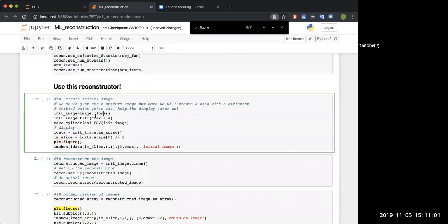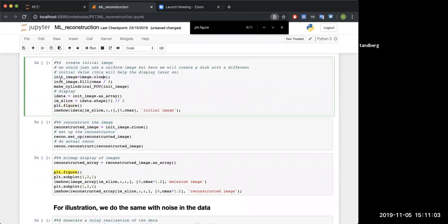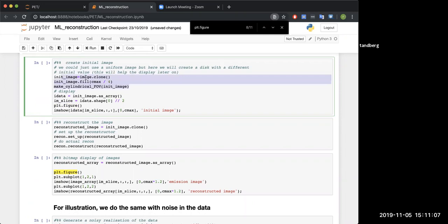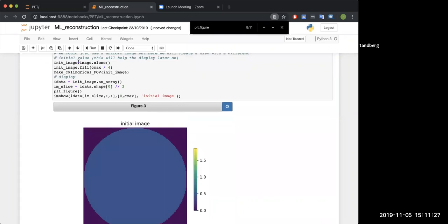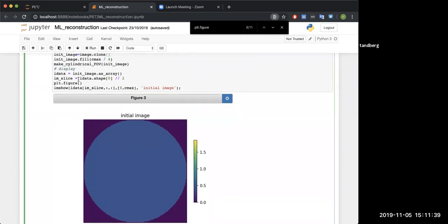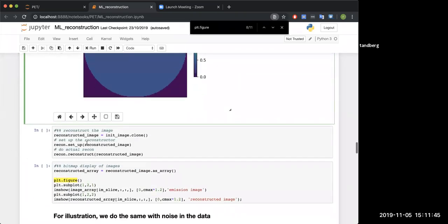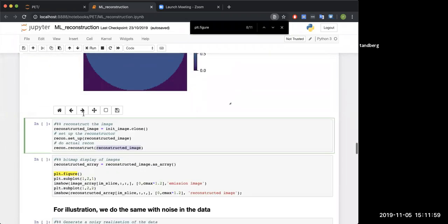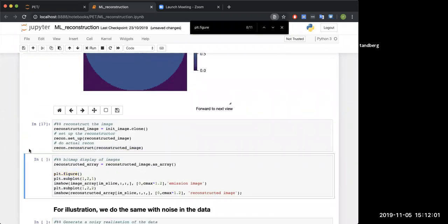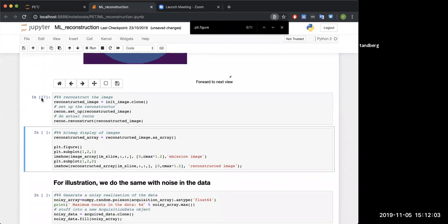Then we're going to do the reconstruction. Here you can see I'm creating an initial image, which is going to be a clone of my input. I'll give it a cylindrical field of view, so I'll chop everything outside of that cylinder. Outside the scanner geometry, I'll set it to zero. We did do a clone of our initial image, but I don't want you to think that's us cheating. We set it all to some fixed value, then if it's outside the cylindrical field of view, set it to zero, and then do the reconstruction.